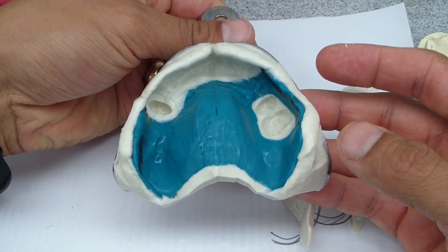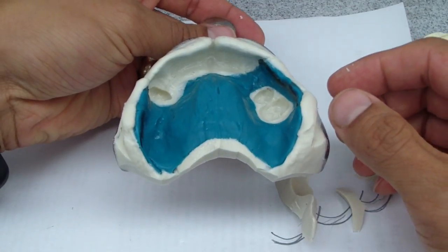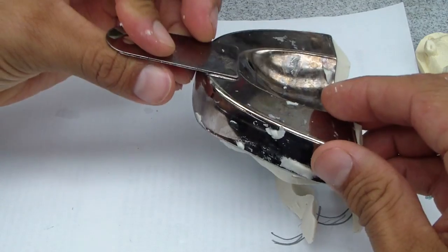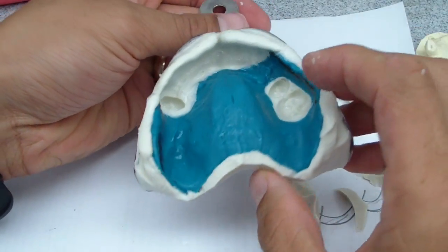We're going to pour this. I'm going to do a pour technique. So the initial pour will be like this, and then we grind the little curlicues that we put on top, and then pour the base like that. So this is the sectional impression technique.